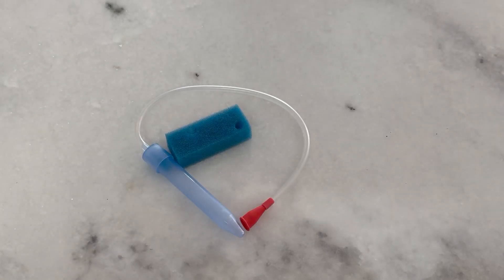Hello, this is Crystal from Jensen Family Farms, and today I am reviewing the Nose Frida. This is a great product for our little one.